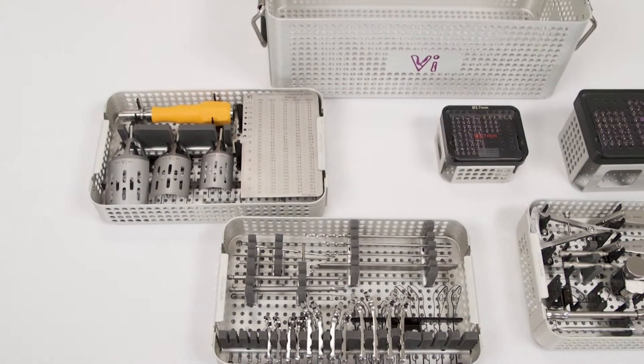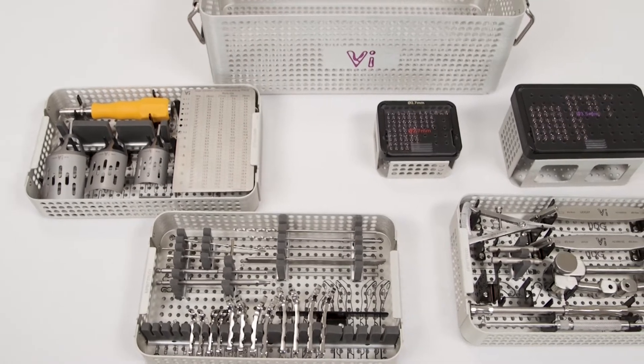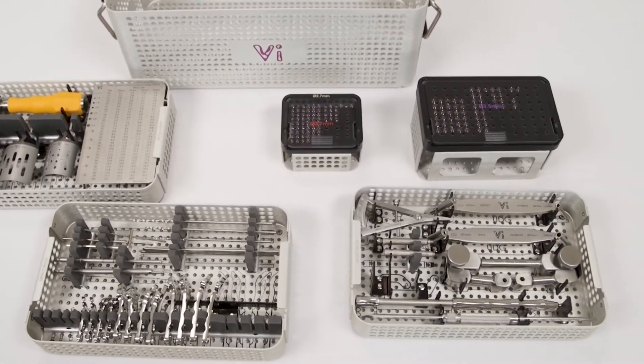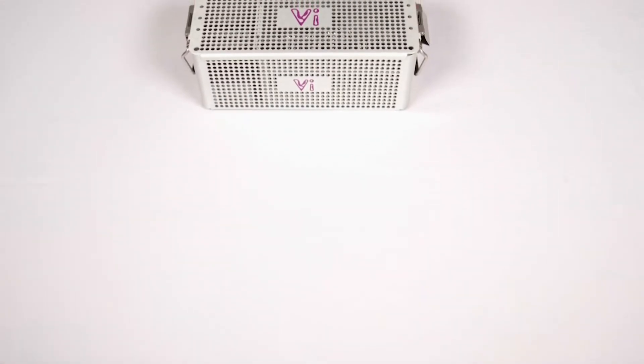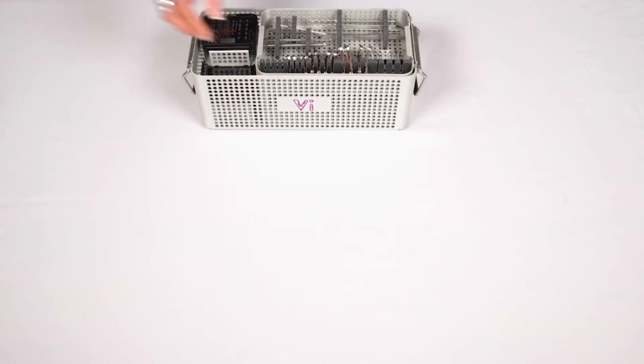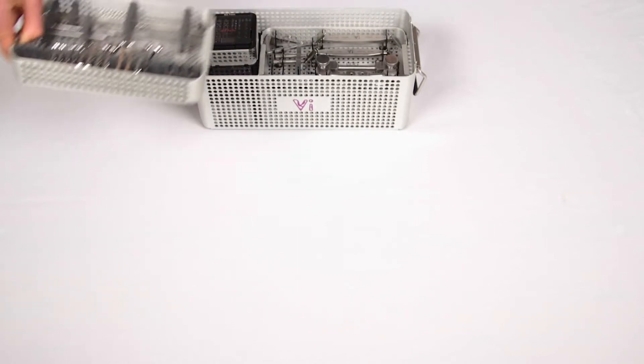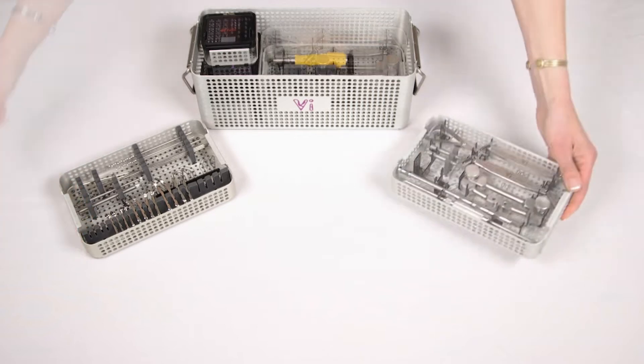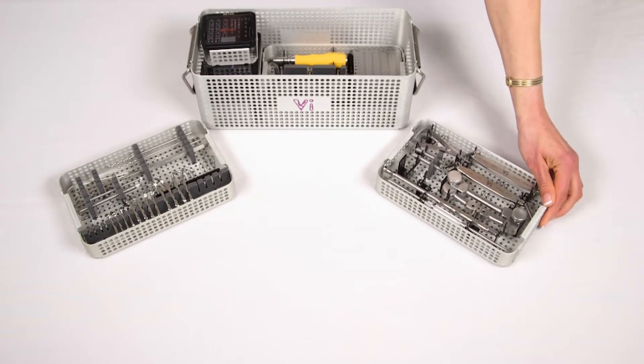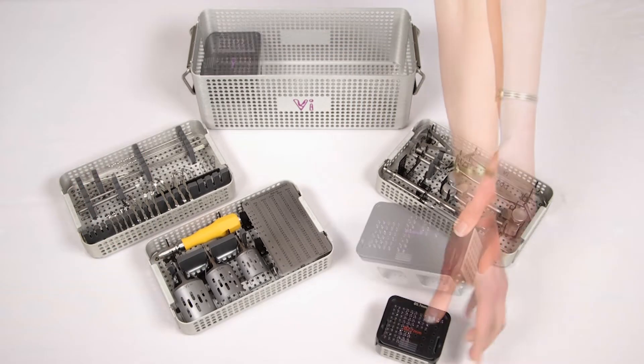The Modular Plating Box concept for TPLO equipment consists of three different elements: the Outer Container, which consists of a base and lid with secure catch and outer handles; three Instrument and Device Trays; and two Screw Caddies.